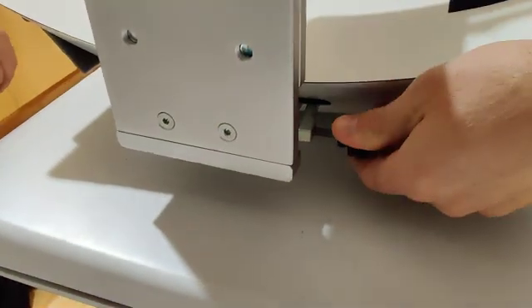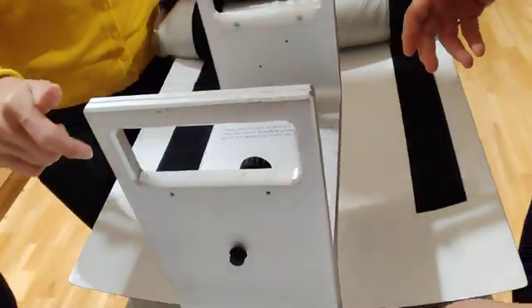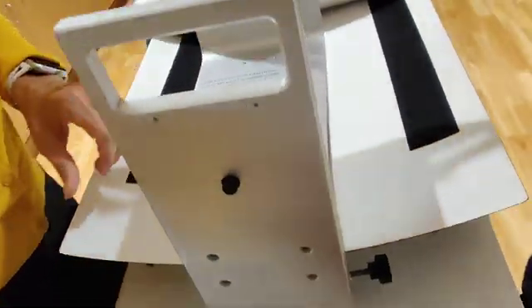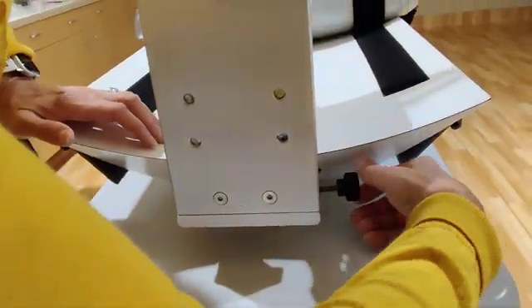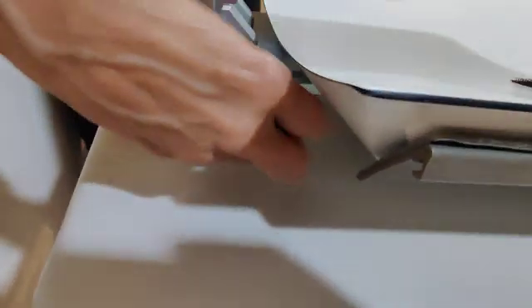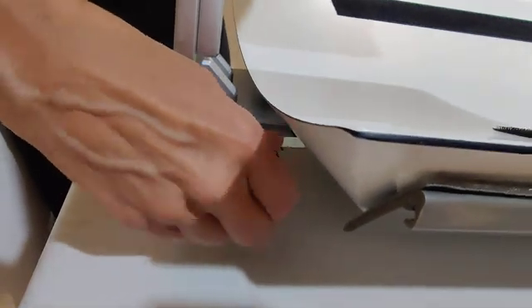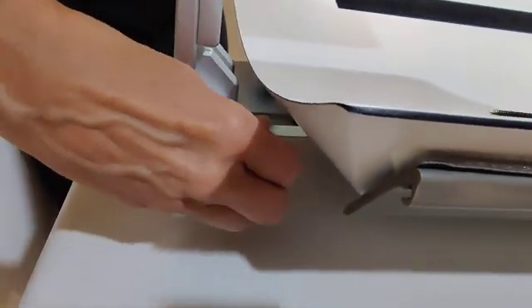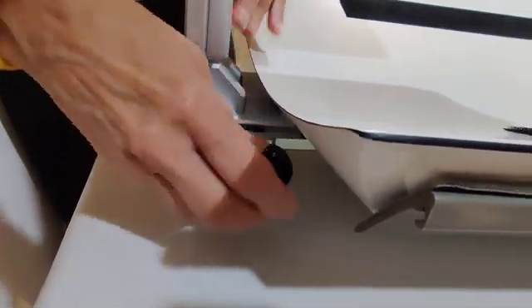Oh yeah, it's kind of because what happens when you start turning this, but let me bring it back out so you'll understand. It actually shifts it where it needs to be, because if you just leave it loose, it'll be loose and could be opposite.